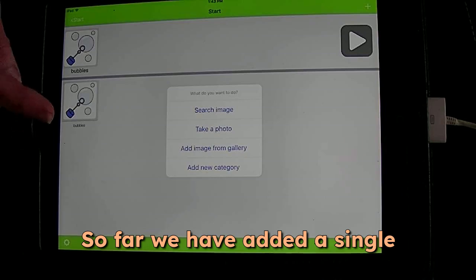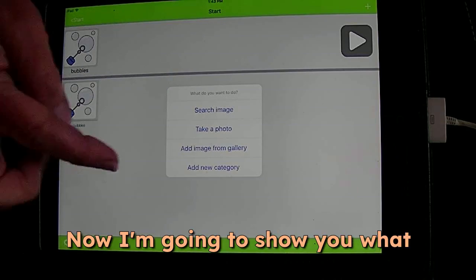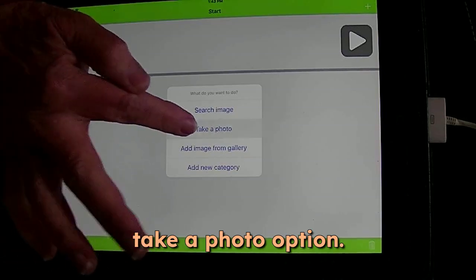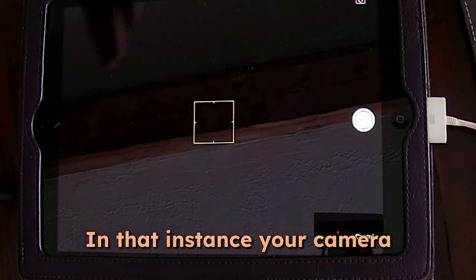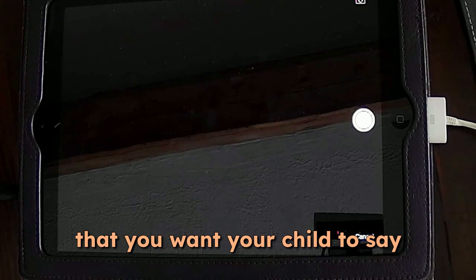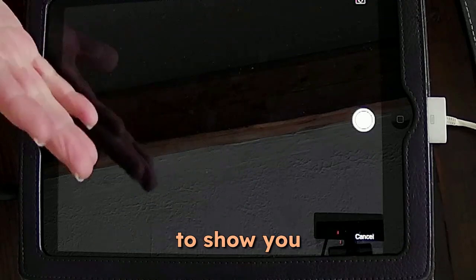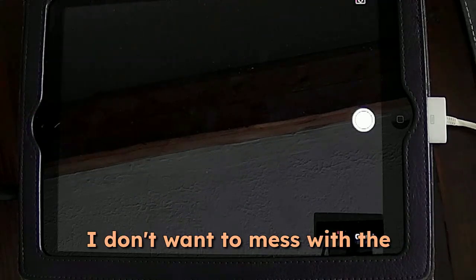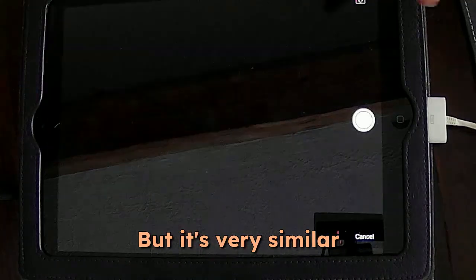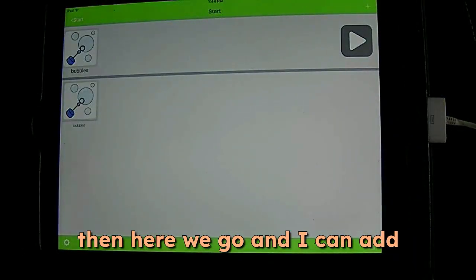So far, we have added a single word using the search image. Now I'm going to show you what happens when you use a take a photo option. In that instance, your camera is going to pull up. You snap a picture of the word that you want your child to say, and then it will pop up similarly to what I'm about to show you. I don't want to mess with the setup that I have going on right now, so I'm not going to do that, but it's very similar to the next button. So I'm going to hit cancel, and then here we go.